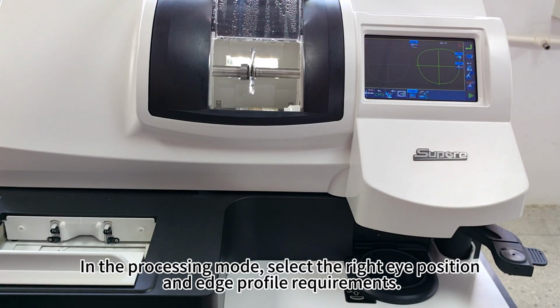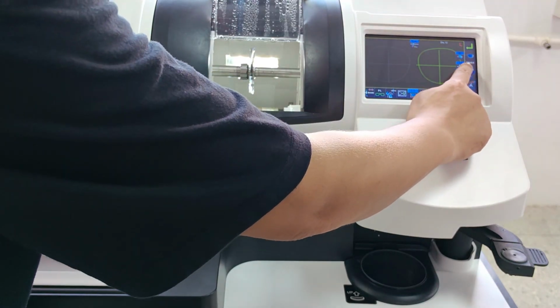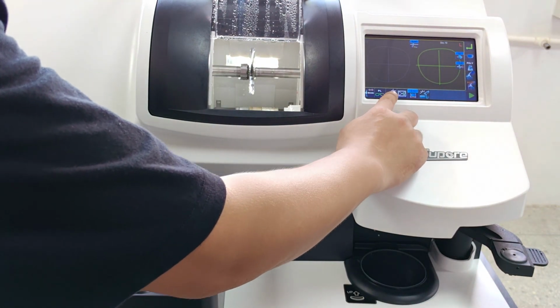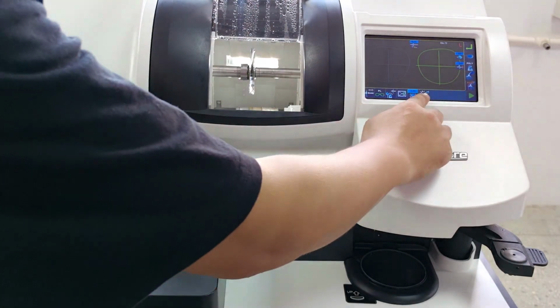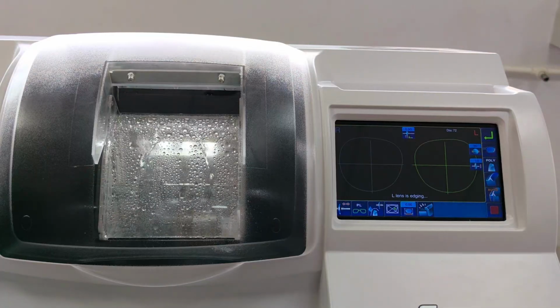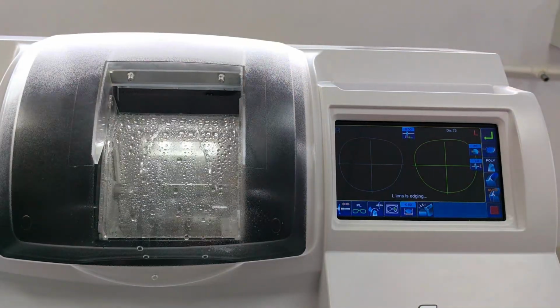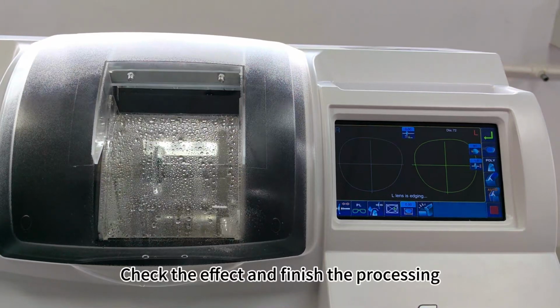In the processing mode, select the right eye position and edge profile requirements. Check the effect and finish the processing.